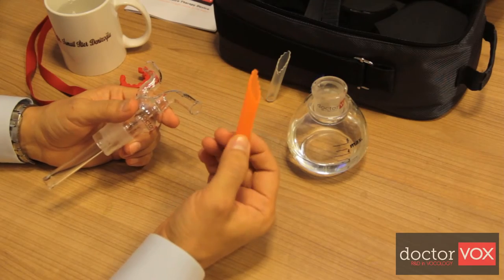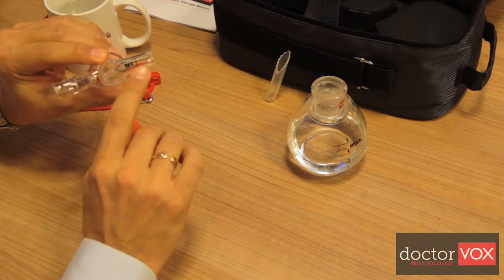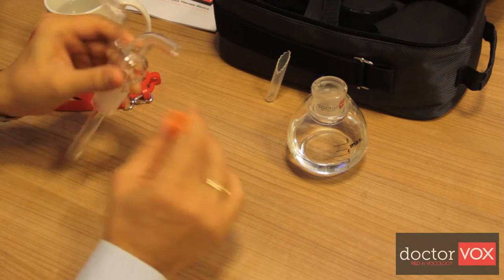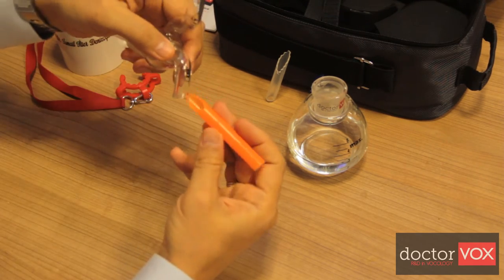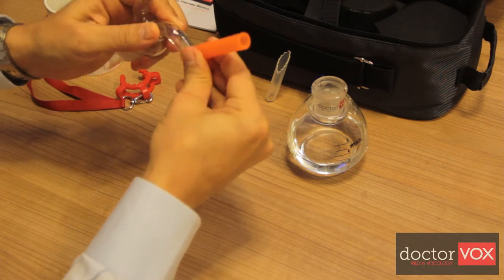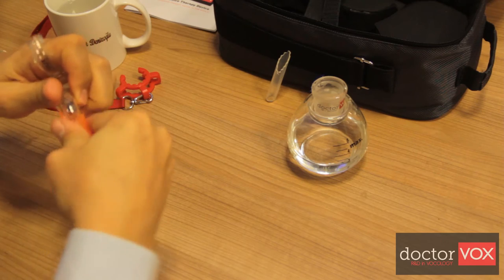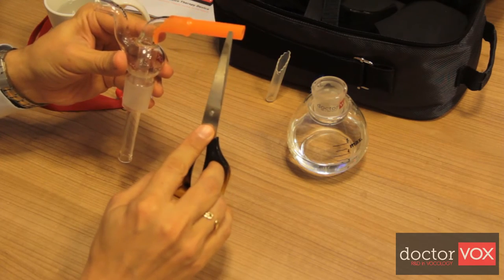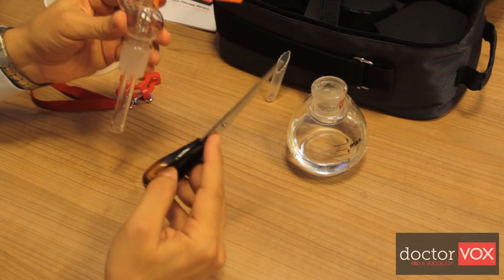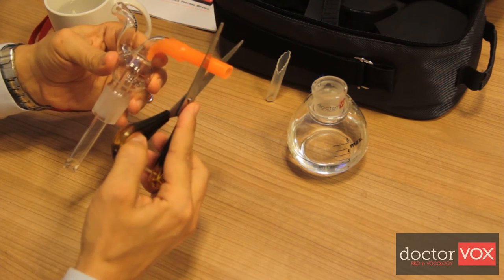The silicone mouthpiece can easily be mounted on the phonation inlet tube by dipping it into some water and then sliding it through the inside of the silicone tube. The silicone tube can be adjusted according to the length of the vocal tract of the user by cutting the silicone tube.